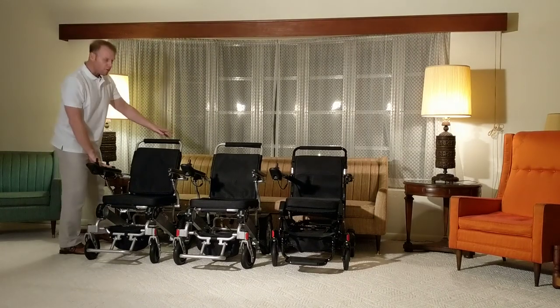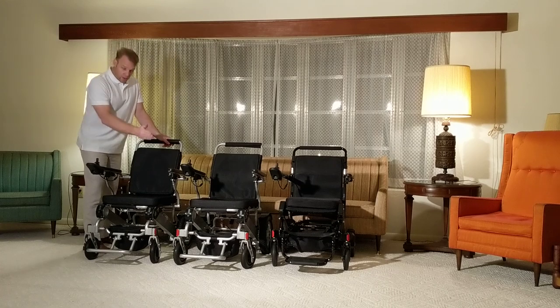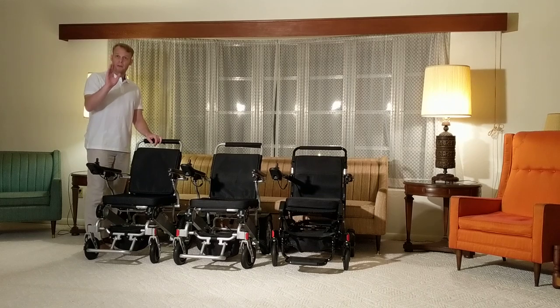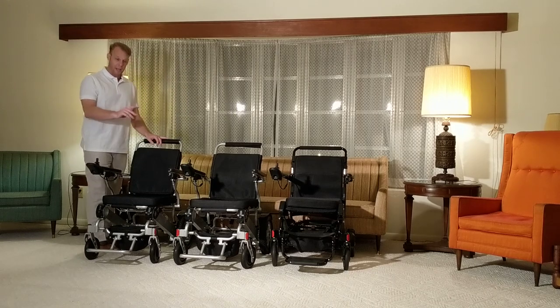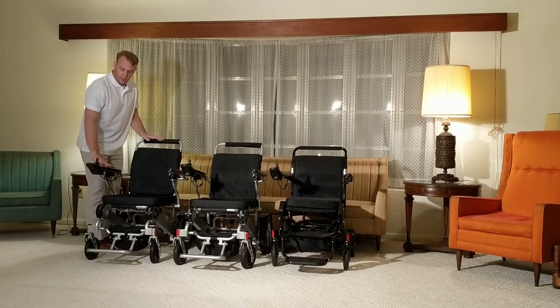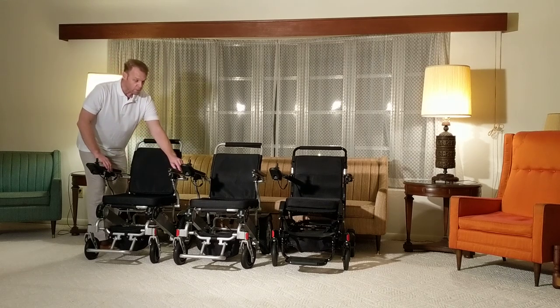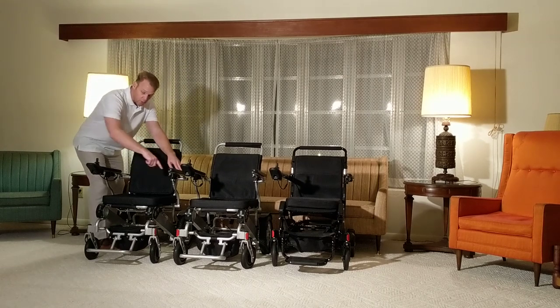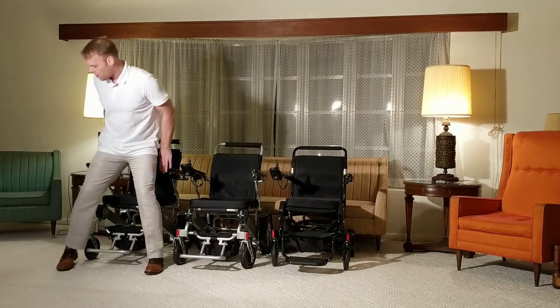The last chair we're going to review is one of our newest chairs — the Electra 7 series. We have the regular Electra 7 (not reviewing tonight), the Electra 7 heavy duty model, which closely resembles the AHXLS but is an updated model, and the Electra 7 wide version.